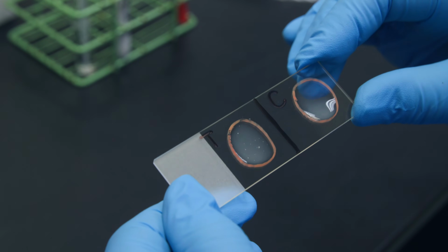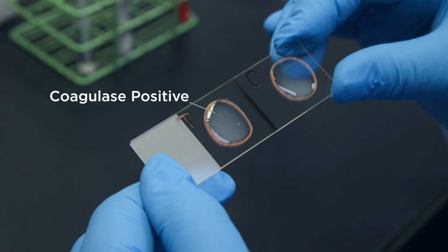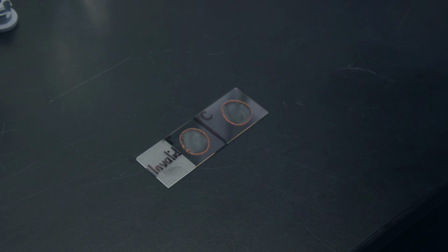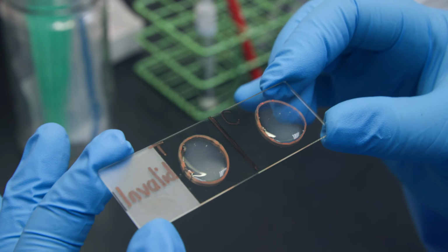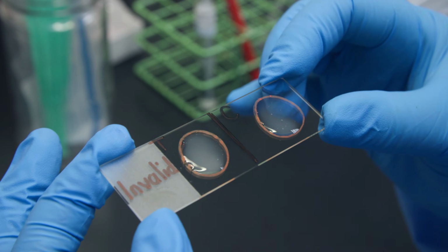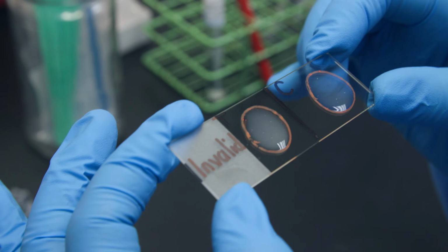Clumps that will not mix uniformly into coagulase plasma represent a positive slide coagulase test and are indicative of S. aureus. A negative reaction is recorded when colonies mix smoothly into solution. Clumping in both the coagulase and negative control indicates that the organism autoagglutinates and is unsuitable for the slide coagulase test. When autoagglutination is observed, the tube coagulase test should be employed as an alternative to the slide agglutination test.